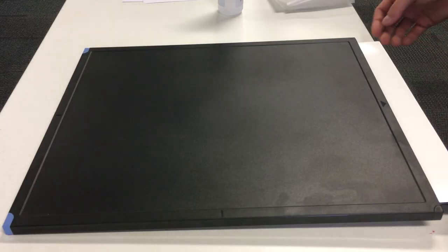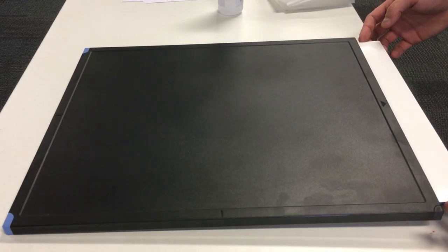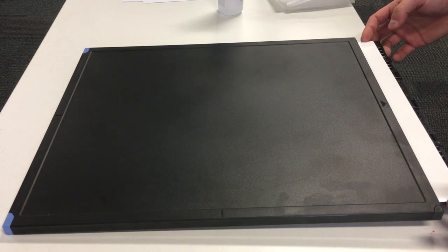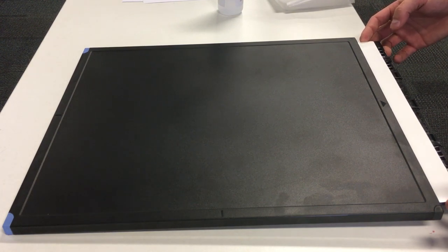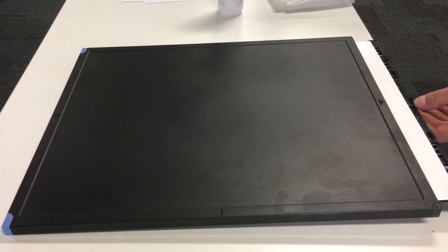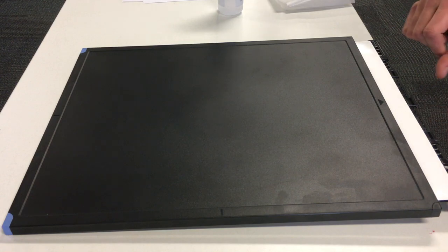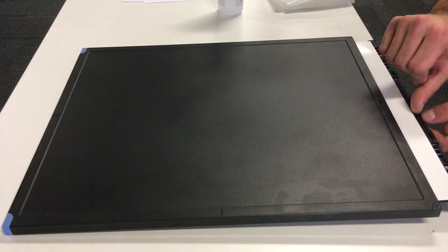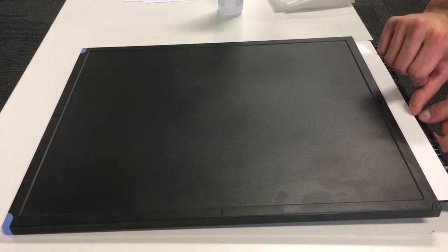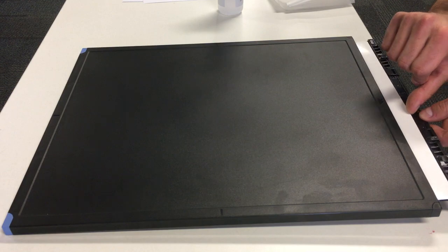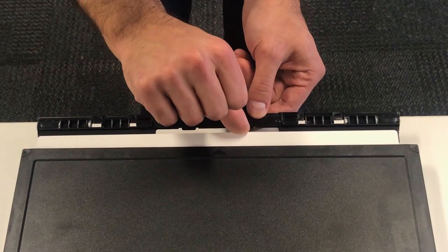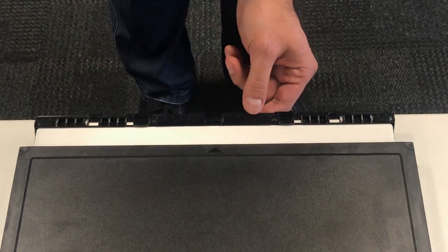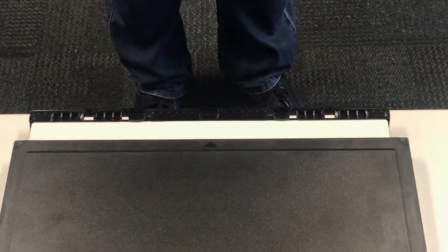So once you're in here, you can just go from the corners a bit. And we just need to give a little bit of a push to sit it right. So just push it a little bit. And then leave it, just like that.